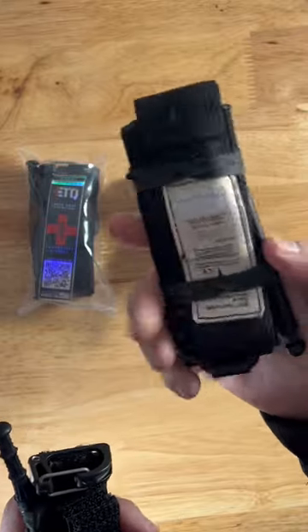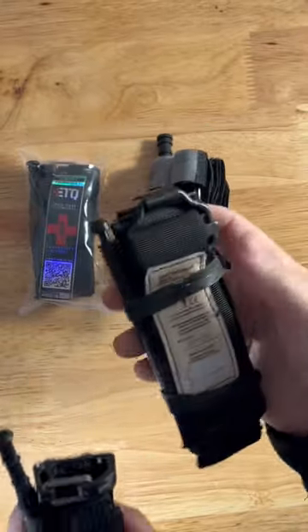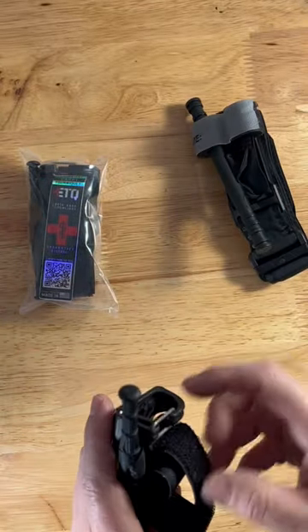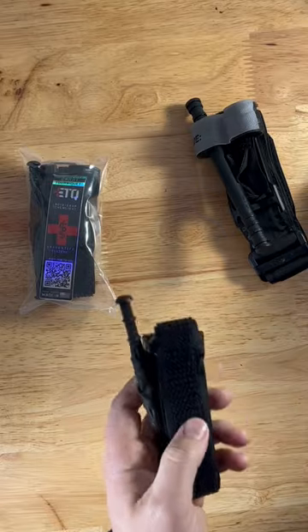I'm not sure on the Soft-T — it is metal on the Soft-T — but this tourniquet is considerably smaller, so you're more likely to carry something that is smaller. I found the Soft-T was the best option for EDC.